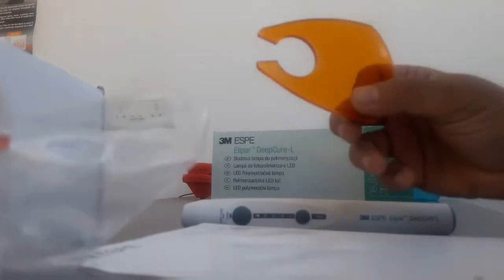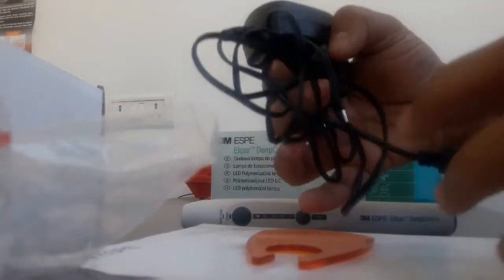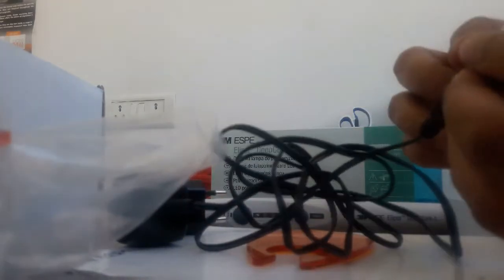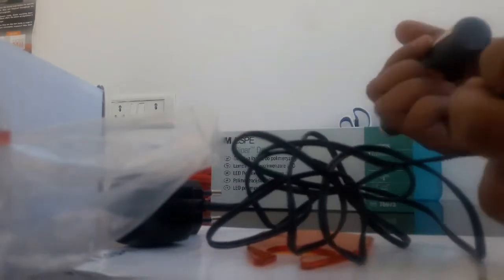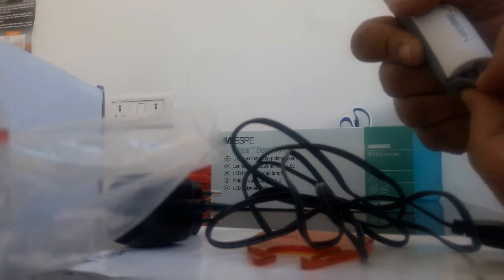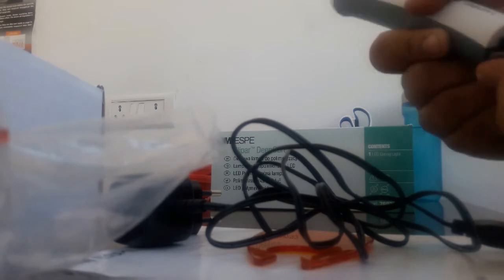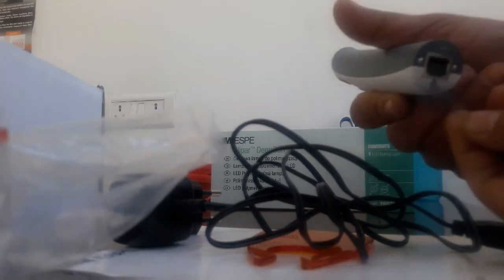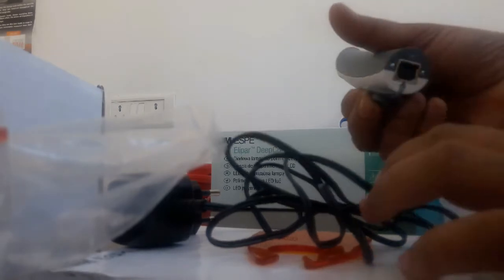This is the gun, this is the protector for UV light, and this is the charger. The charger connects over here, so just open this from this side and you can see.